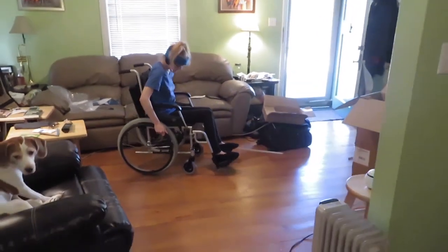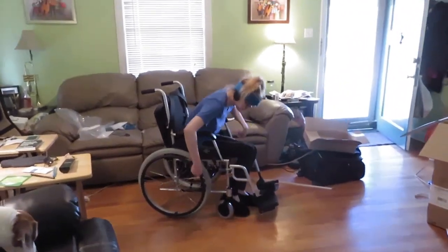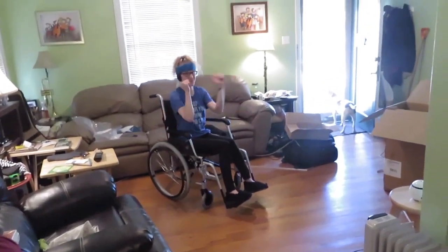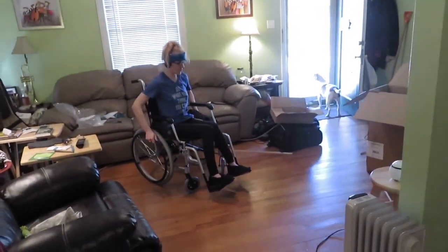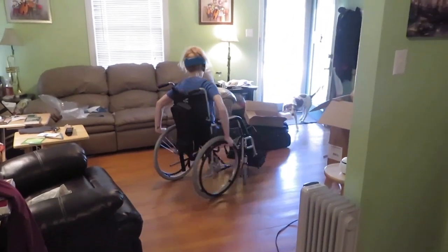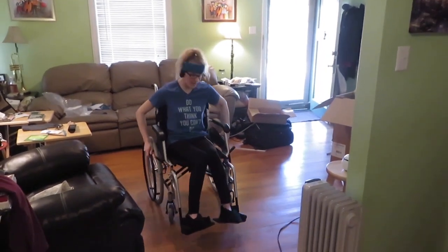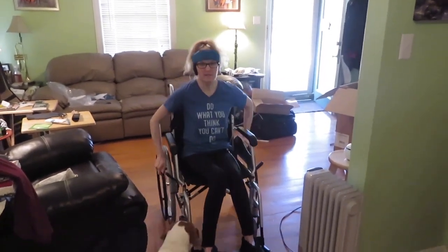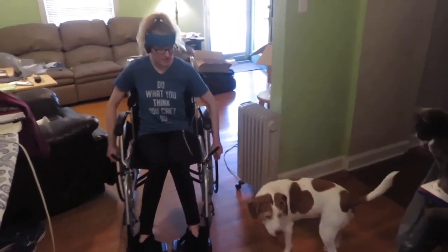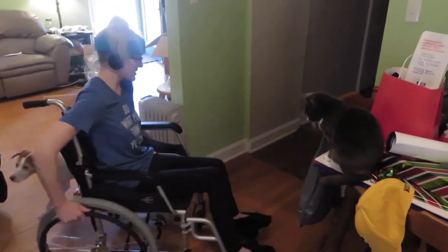Make sure your brakes are off. It's going to be hard to roll with that plastic still on the wheels. Quick pause — I'm going to take the plastic off. Okay, plastic off the front wheels, ready to go. Let's check out the pivot action first. It's kind of hard on this floor because it's such smooth wood, but that actually makes it easier — it works well. The tread on the wheels is good but it's still super smooth.